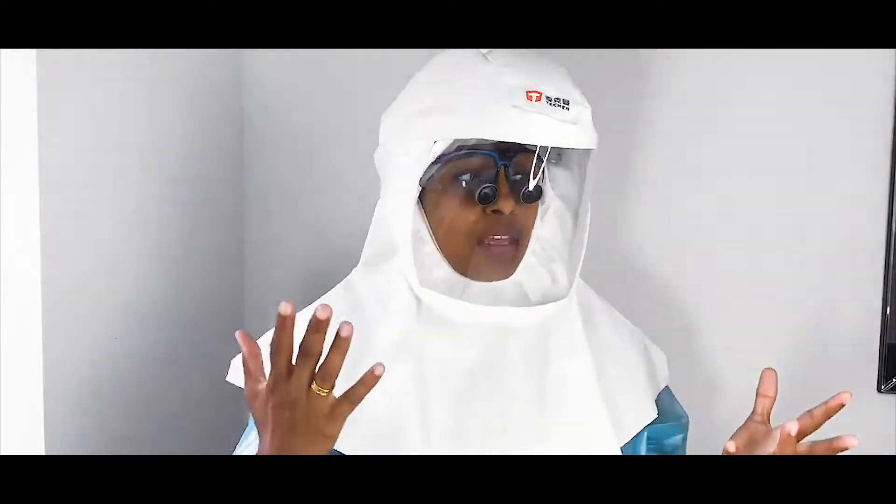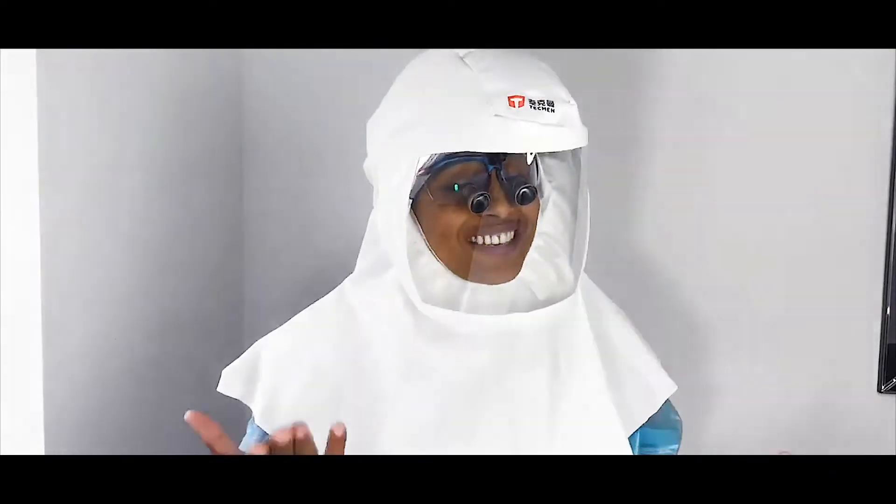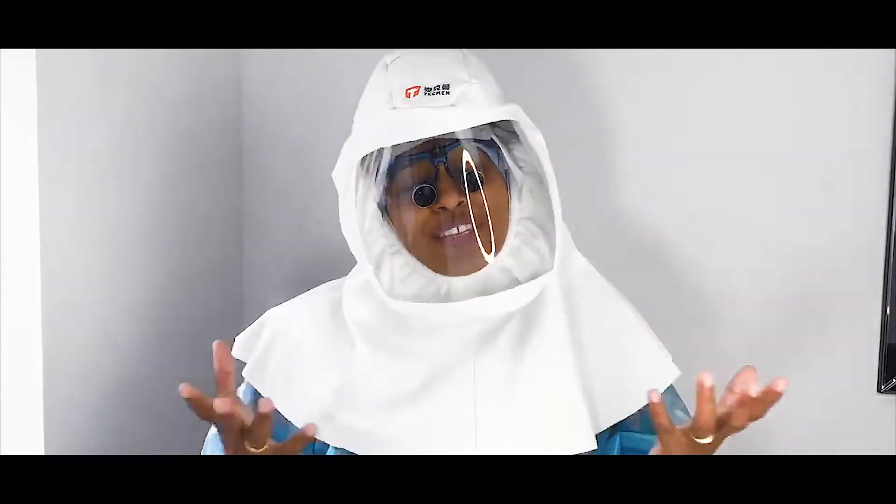The breathing feels very comfortable. I really like what I'm feeling so far. An advantage does come with some disadvantages — this is very expensive equipment. But if you're going to have long surgeries or you're working in a hot environment, I'm really liking it. It's great that I'm getting a chance to try it before ordering it. Of all the masks I've tried, this is what I really like the best.